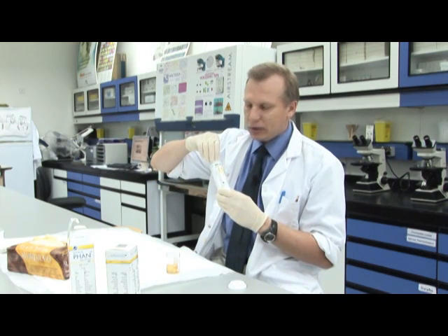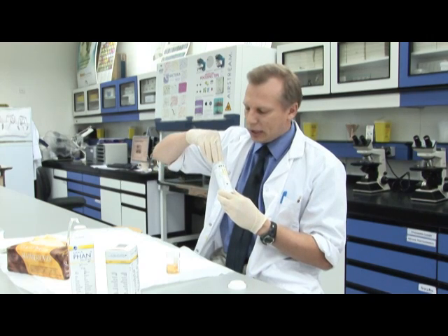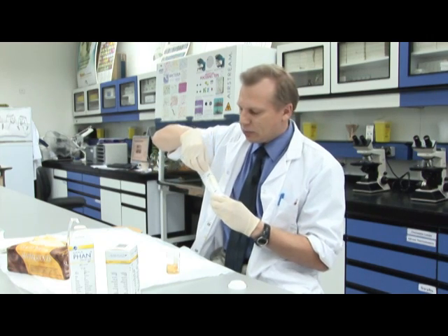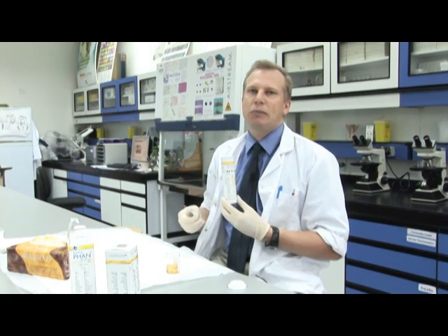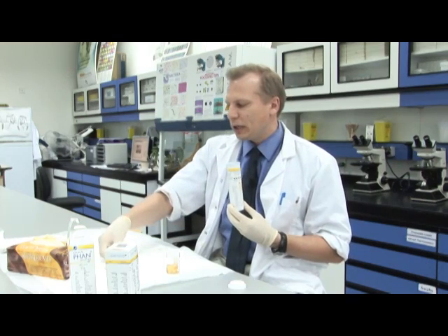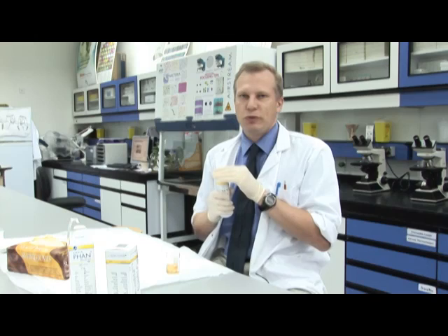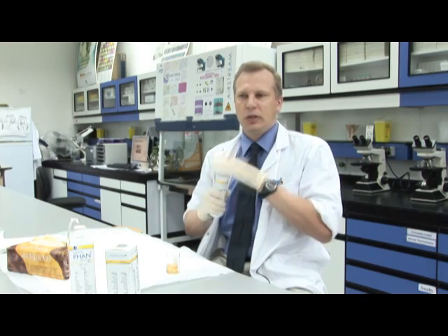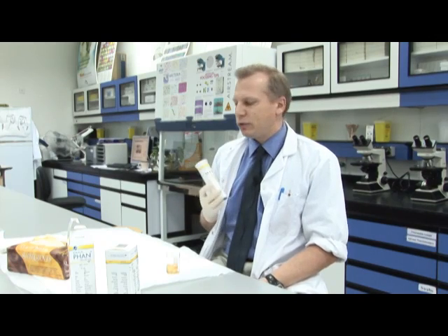You might do some more tests on them to see where the bleeding is coming from, but it just gives an initial indication. Sometimes we bleed a little bit in our urine if we've been exercising very hard — maybe run a marathon or something like that — and that's not unusual. But if there's a very large amount of blood then we've got cause for concern and we'll do further tests. It's very useful as a non-invasive test; we can easily get a urine sample, run a test, and we'll know in a few minutes if there's a problem, and then we can do other tests.